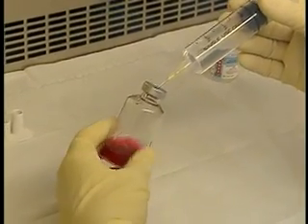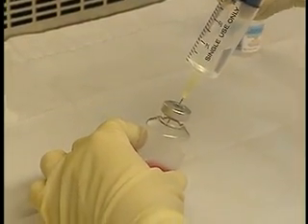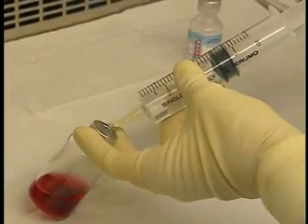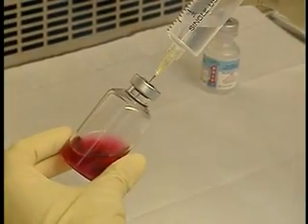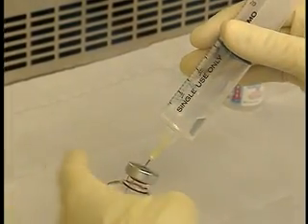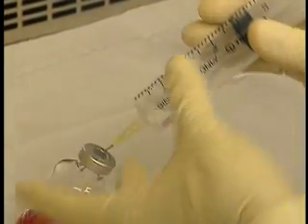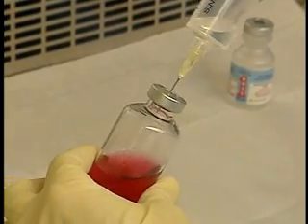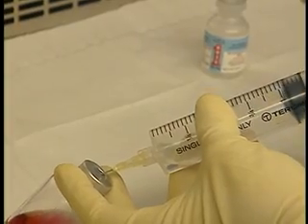Now inject a small amount of fluid, preferably by letting it flow into the vial or by pushing on the plunger without going below the initial volume of the syringe. Pushing the plunger below this volume could create overpressure in the vial with the risk of exposing the handler to antineoplastic aerosols. Slowly inject the fluid, tilting the syringe to direct the jet to the base of the vial and then along the sides, ending by diluting the powder in the center of the vial with a circular motion. Gradually pull the needle up to prevent the bevel from dipping into the solution. Repeat these steps until the diluent is completely injected into the vial and the syringe contains a volume of air at least equivalent to the volume of diluent.